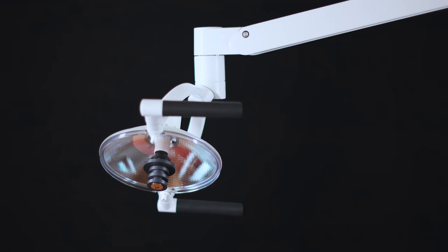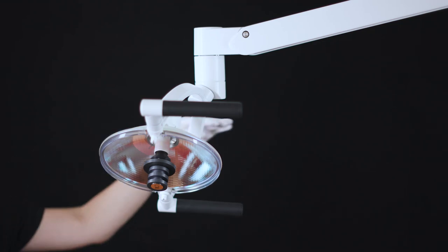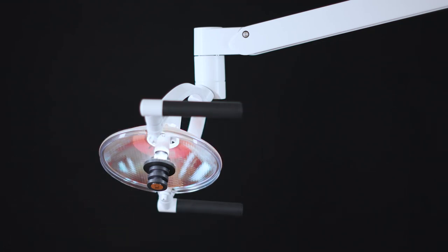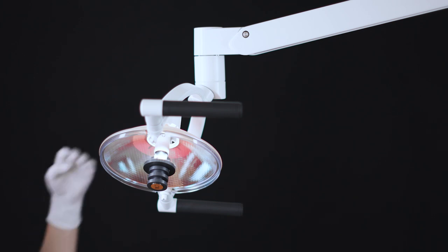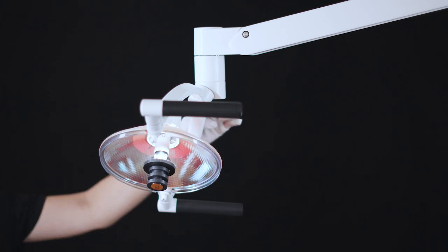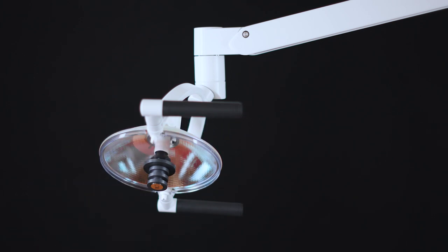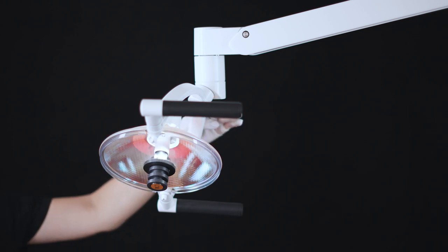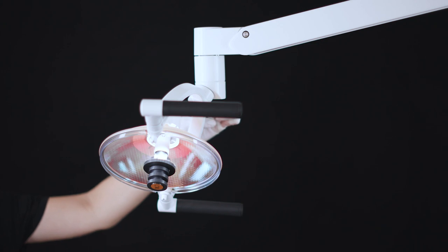Controlling the operating light is very easy. Manage the light manually by activating the no-touch sensor under the light head. Hold your hand within activation distance for less than one second and the lamp switches on and off. Change the light intensity, three levels, by activating the sensor for more than one second.